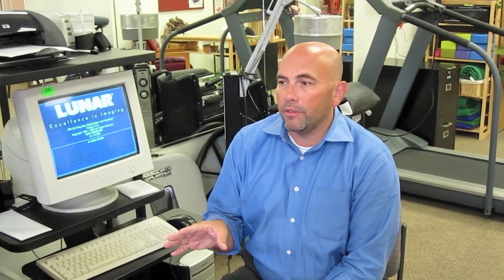What I like about this machine versus some of the other machines — what they do for some of the screenings is, some machines you just put your finger in and it checks the bone density just by using your finger. Some of them use just the trochanter or the hip.